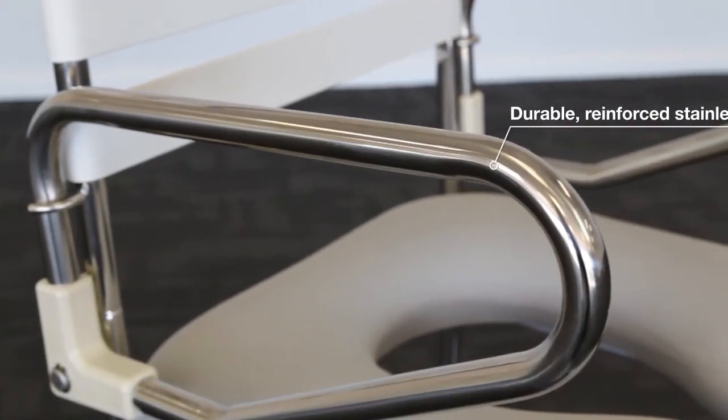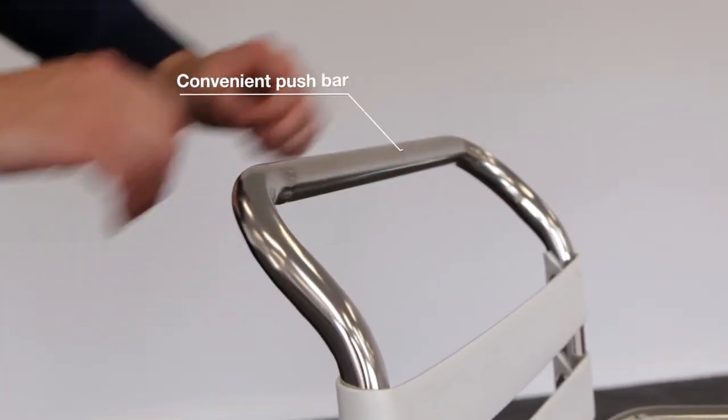The durable frame is made from reinforced stainless steel and moving the commode is easy with the convenient push bar.